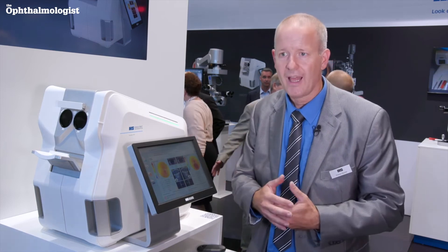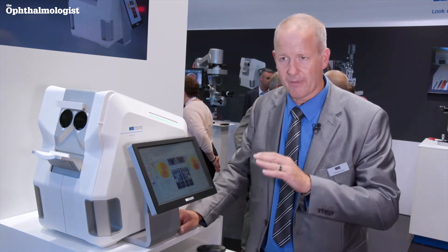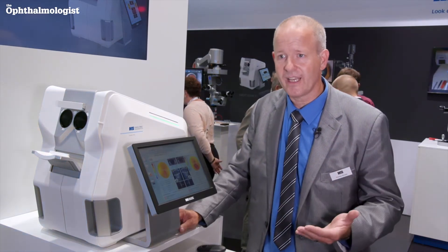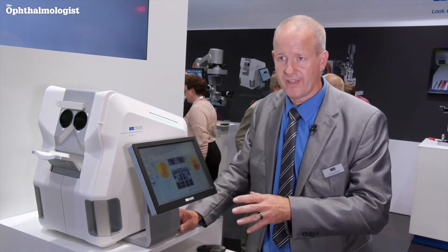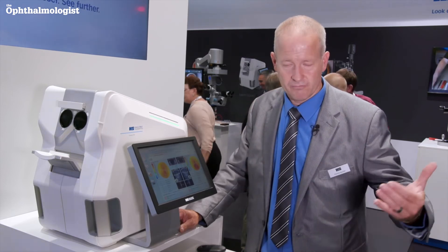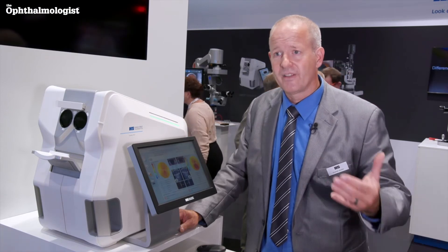The measurement can be performed by anyone in the practice — it's easy to delegate. And because you can network the device, you can then review the data in your consultation room and counsel the patient on what might be the best option for them.